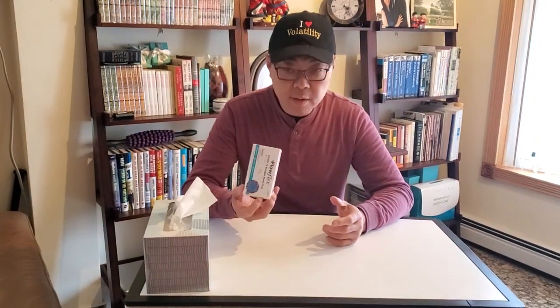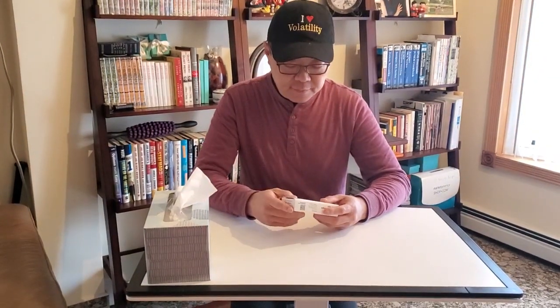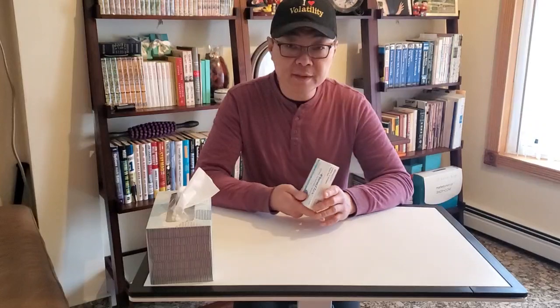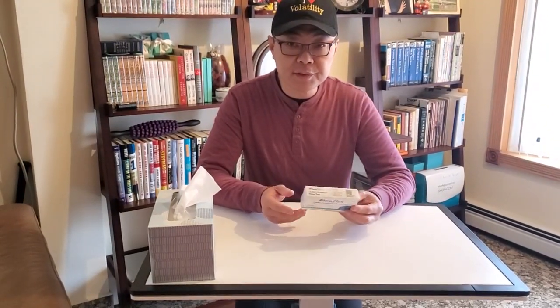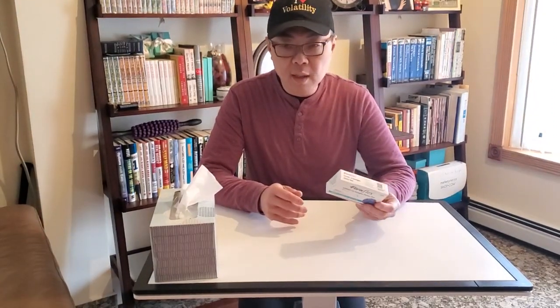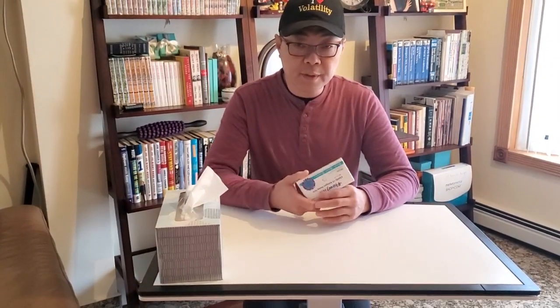So a quick guide to using the FlowFlex COVID-19 antigen home test. We got this because of the new variant, the Omicron variant. We're getting together today for a holiday party and everybody's a little concerned, even though some of us have had our booster shots and all of us had our two shots already. We have elderly parents, so we thought about getting a test and I thought about making a quick video showing how to use this.